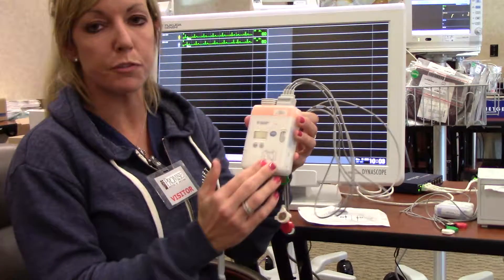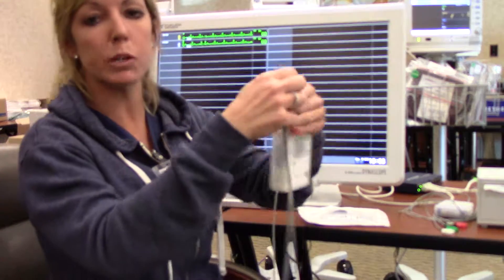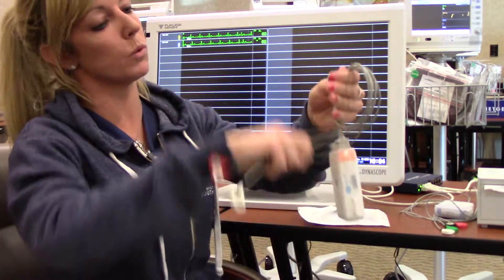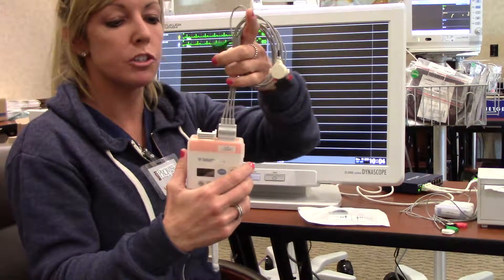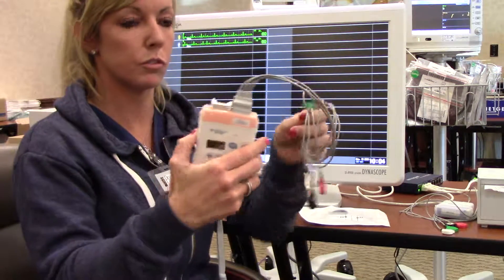There's a diagram on the front for lead placement. Another key point with the telemetry boxes is storage with the EKG telemetry leads — do not wrap them around the box. Gently wrap them fingers-width apart to protect the fiber optic cables within the telemetry leads.